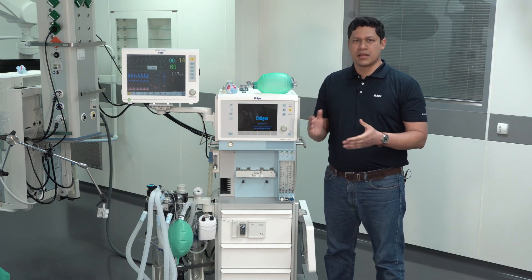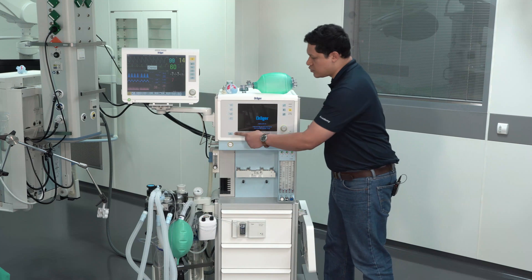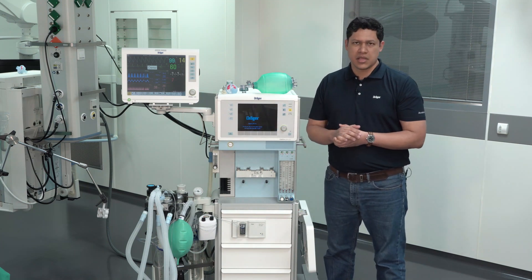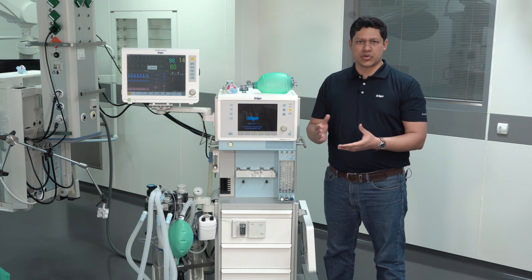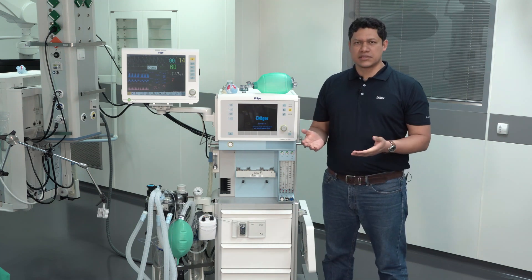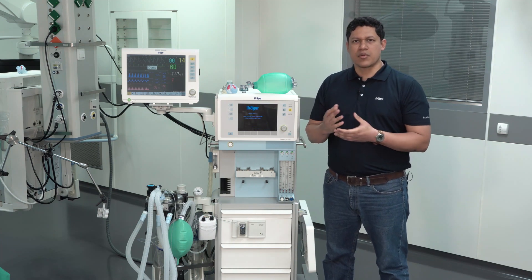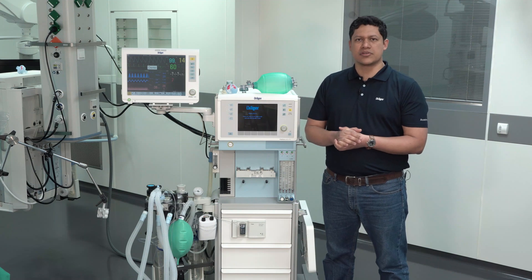Keep in mind: manual spontaneous mode in the ICU ventilator does not equal the one in the anesthesia device. Use it only after instruction from an anesthesia expert. If your anesthesia device is supplied with an external fresh gas outlet, our recommendation is not to use it for long-term ventilation.